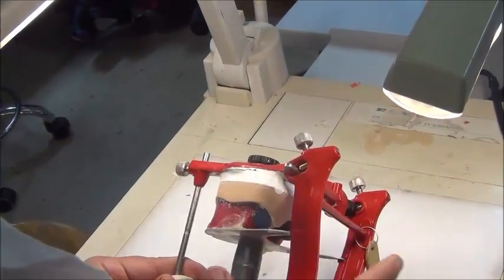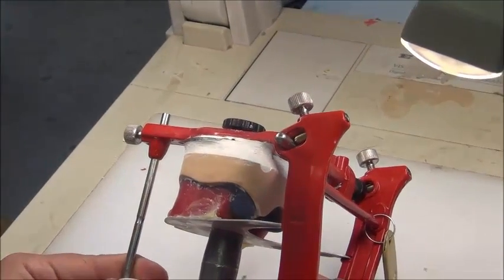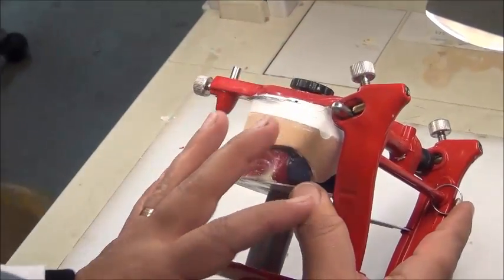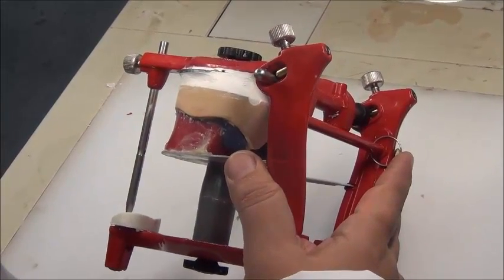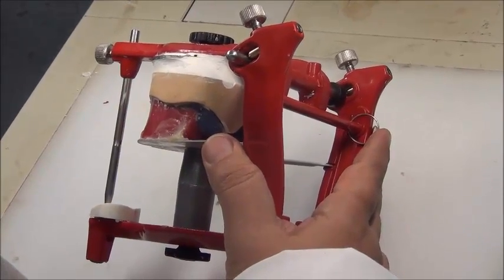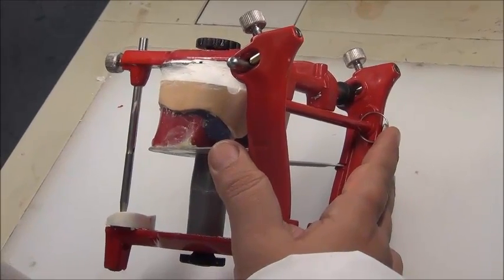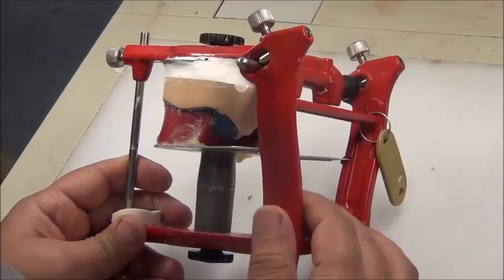There are some general outlines or rules that we need to observe while we're working with the articulators and mounting. We need to make sure that all of the articulator members are clean. This is what we're going to judge you by. If you write down these notes, it will be useful for you to evaluate yourself before you come to us to evaluate you. So we're looking at general points. These are the cleanness of the articulator.